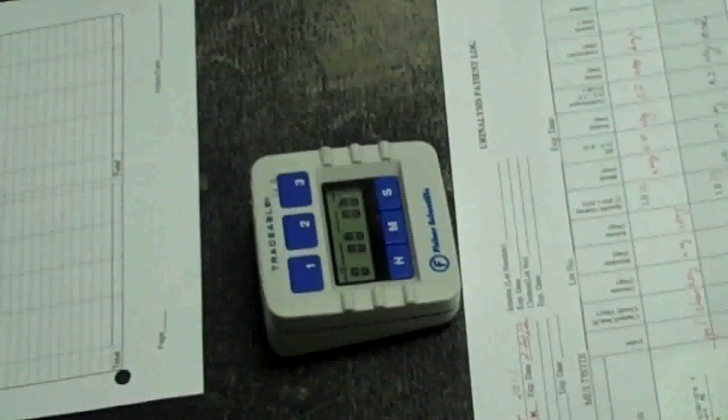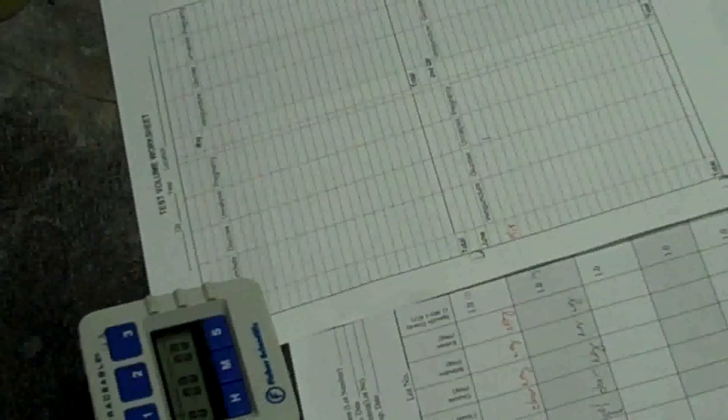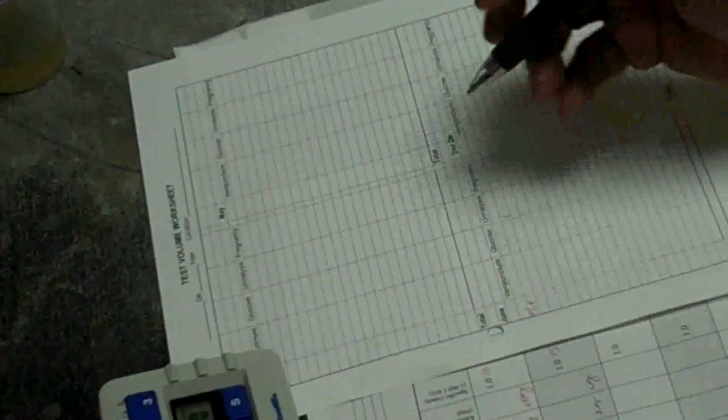Assure that you record all results on your urinalysis patient log and count the urinalysis on your tally.